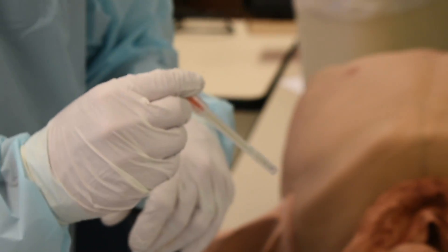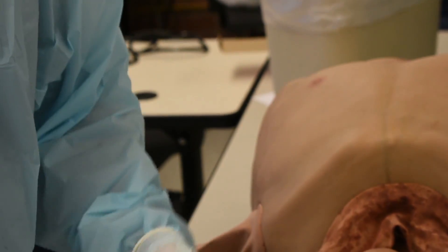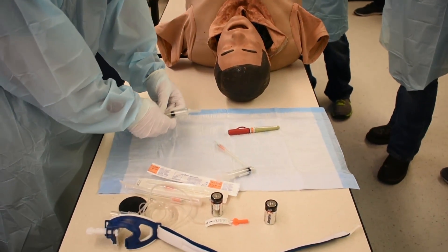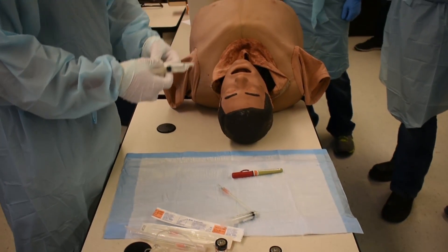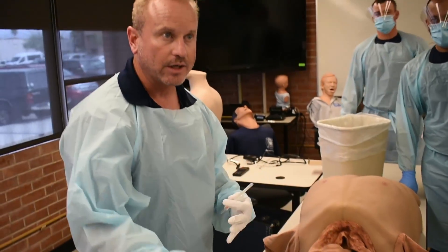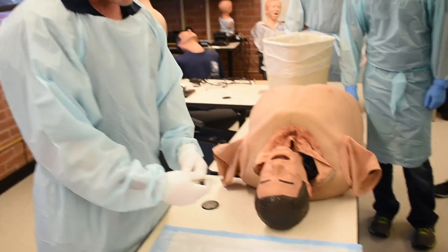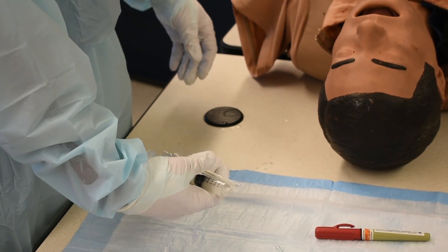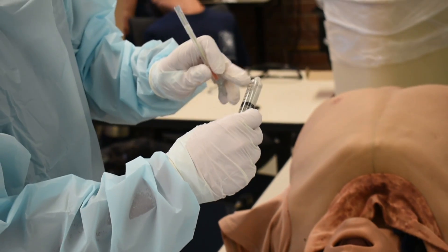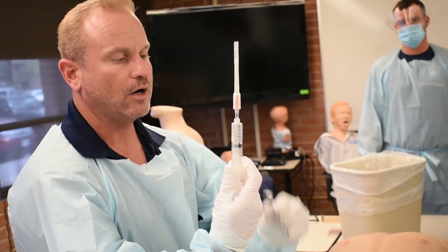Either with or without a syringe, the minute I drop it through the patient's chest, it's going to start venting. I think the preferred way is to keep your needle and your flush together, so when you pull them out — we talked about Hick's Law — instead of having everything in five different spots, it's going to lead you to failure. My needles and my syringes are just like this in my bag. I pull them out, pull off the back, squirt half my saline flush out, leaving me half saline, half air for me to pull. I just hook it onto the back of my needle.